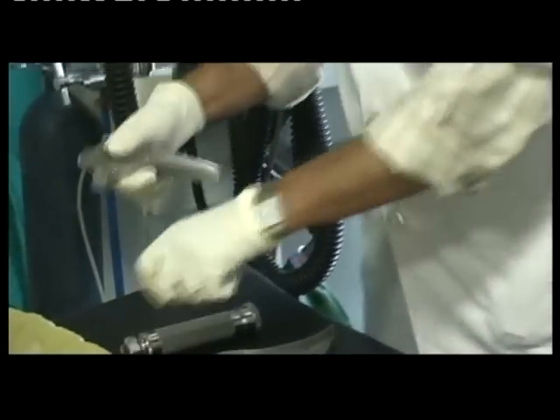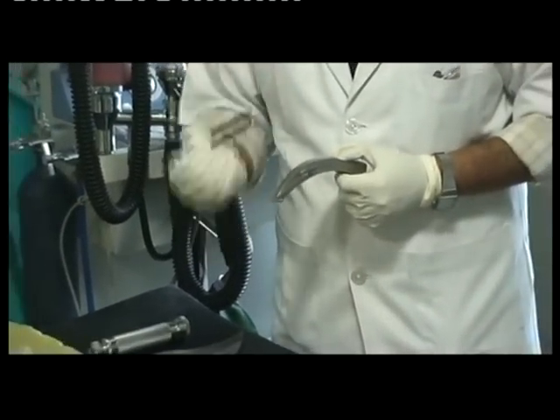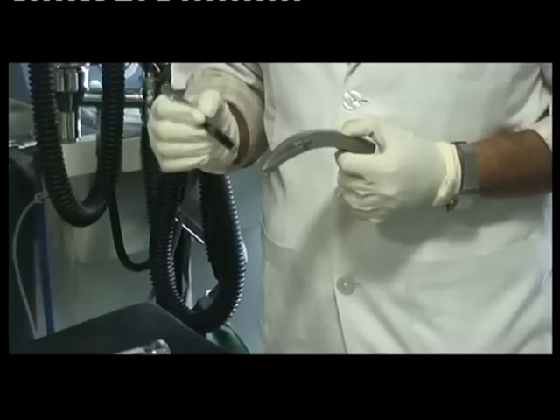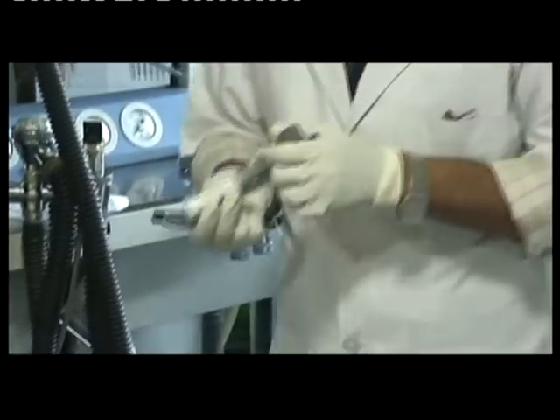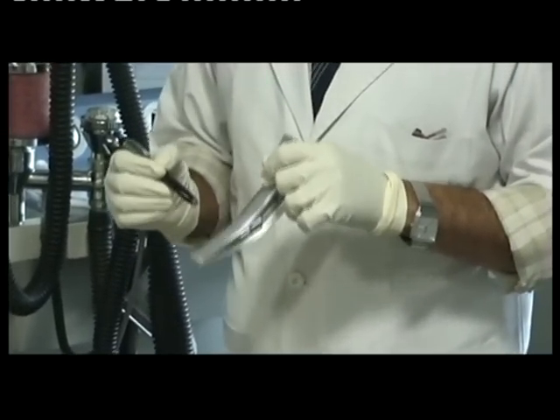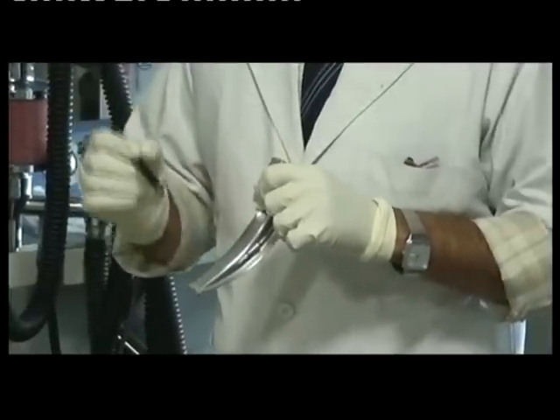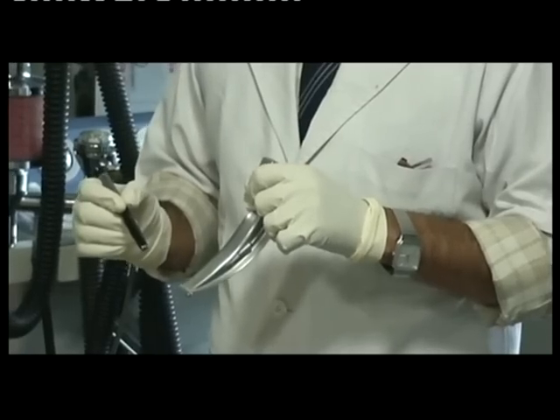The third important part of this blade is the tip, which is thickened and rounded to avoid trauma. When we use it, it comes in contact with the vallecula or the epiglottis. Therefore, it directly or indirectly lifts the epiglottis.